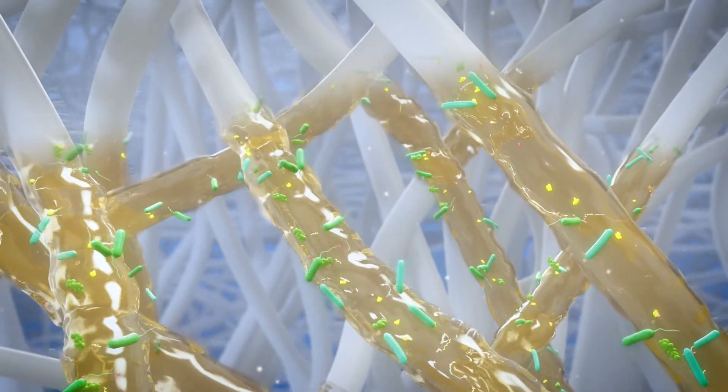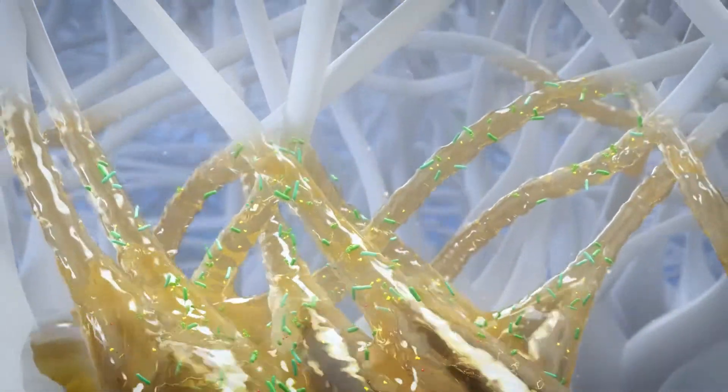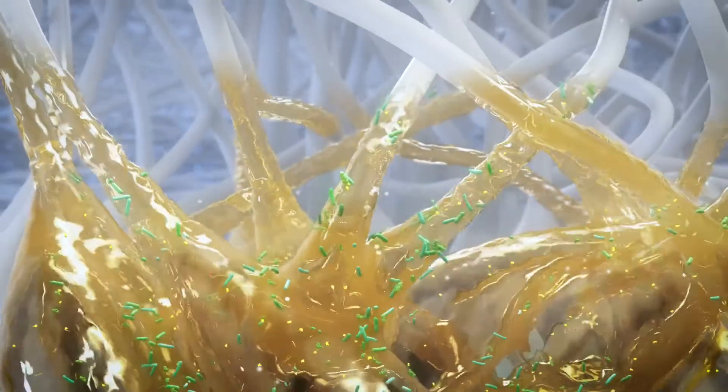Pathogenic bacteria in the exudate is held within the fibres, providing passive bio-burden control.